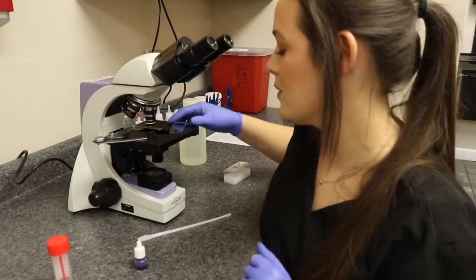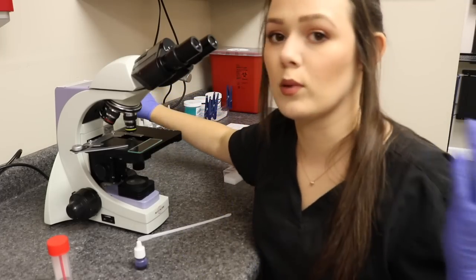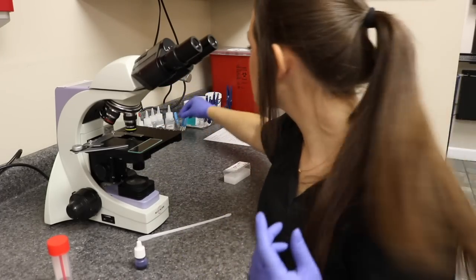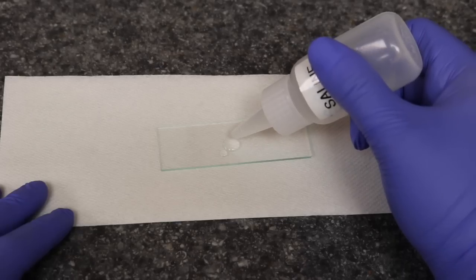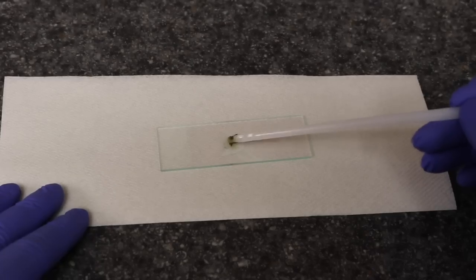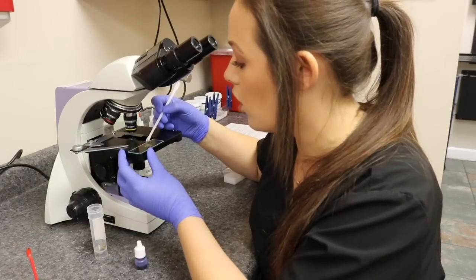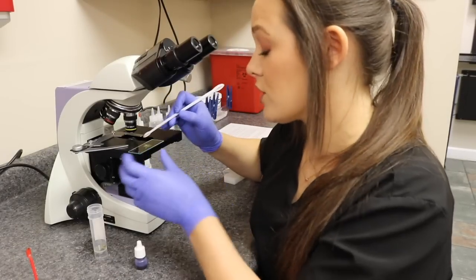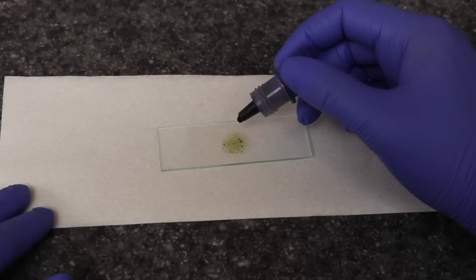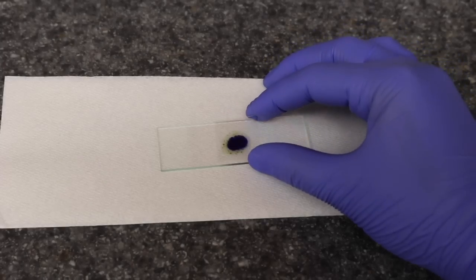Now I'm going to demonstrate how to do a direct smear. When you do samples like this, you're looking for abnormal bacteria — you can see things like Campylobacter or Giardia protozoas. I'm going to take some saline and put a couple drops on a slide, then take my sample and mix it — not too thick, but with some fecal material on the slide. Any large particles you want to discard. I personally like to put a drop of stain on my sample as it helps me read it a little bit better, and then I'll put a cover slip.